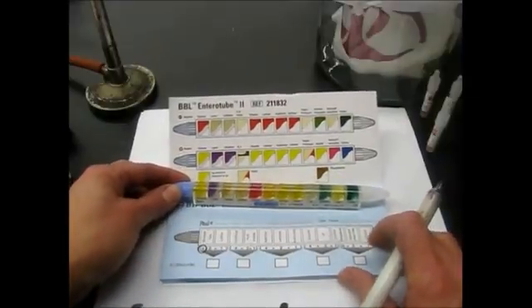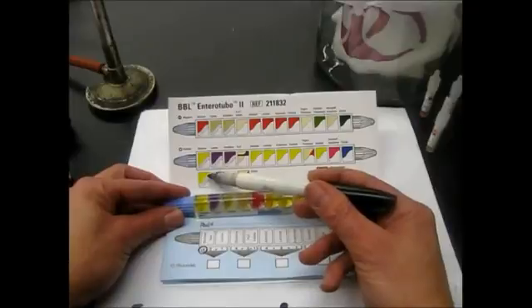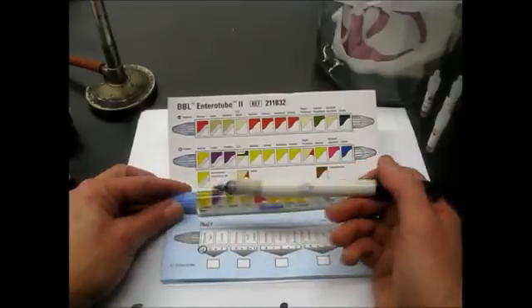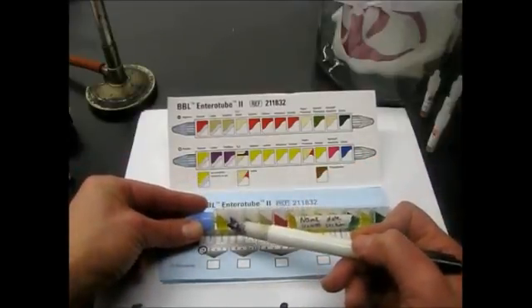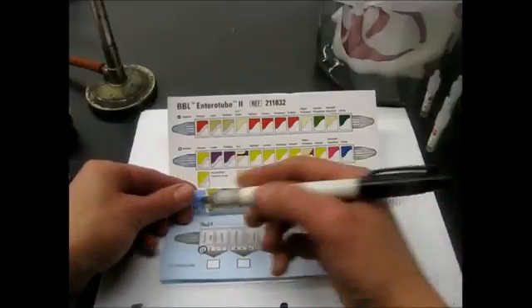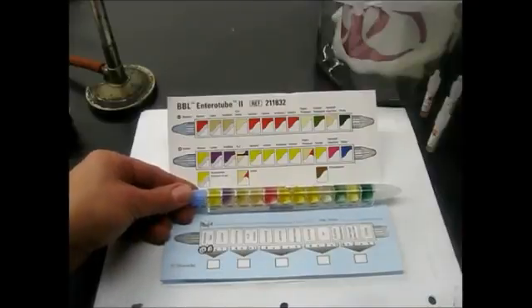Okay? Now for the gas test, if you look on the results pad, it shows if gas was produced, then there'll be a separation between the wax and the media. So you could turn this over and look at the other side and see if there's a separation. And ours does show a separation there. I don't know if you can see it on the video, but there's a separation. So I'm going to go ahead and circle the number under gas.